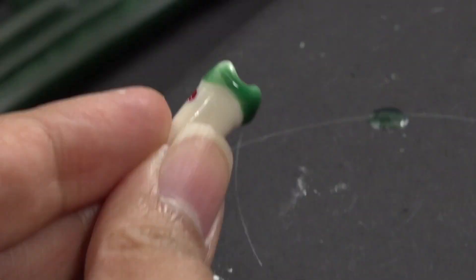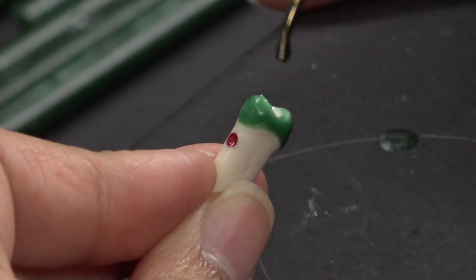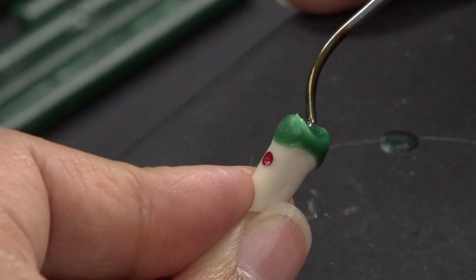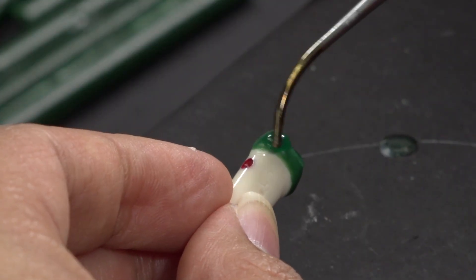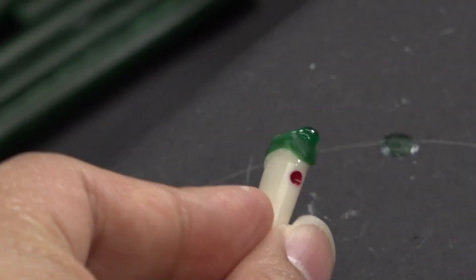Notice that the prep tooth already resembles the original tooth. The coping should be an even layer of wax coating the prep tooth. I begin the coping by following the margins of the prep. This will ensure that I have a clean margin. By following the prep, you can build and maintain the anatomy of tooth number 4.